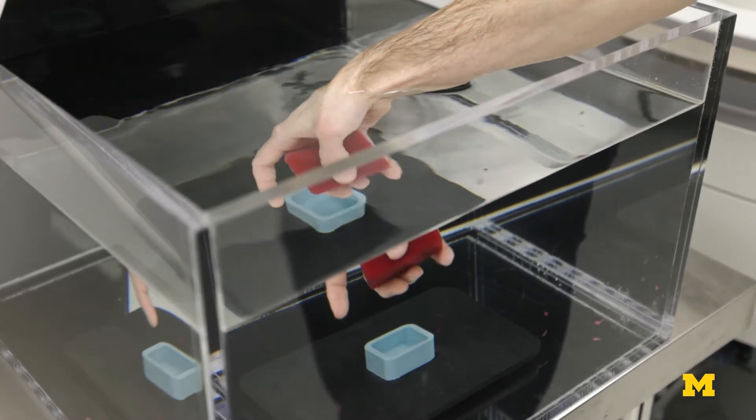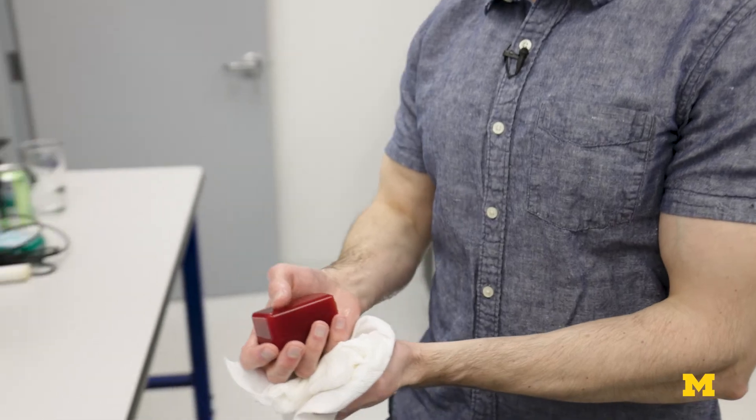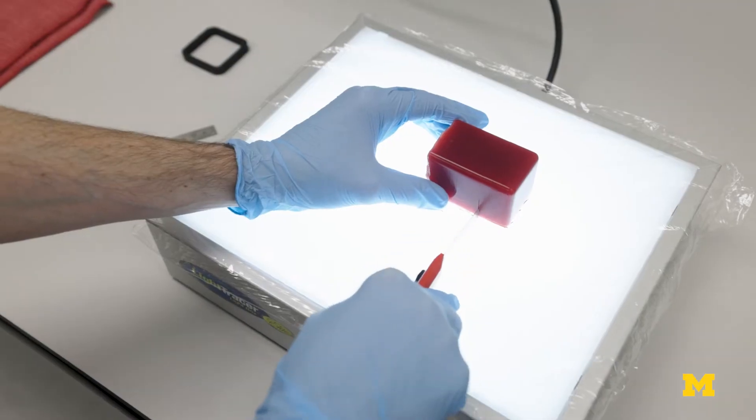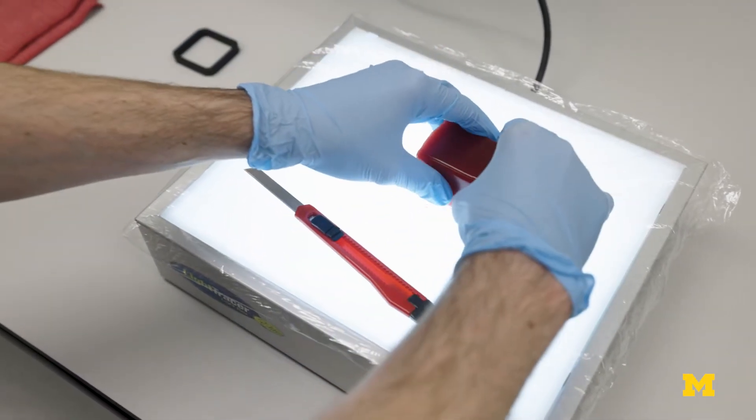The university team, in their diligence, showed a great body of research showing the capability of the therapy, and it was up to us to make it into a product.